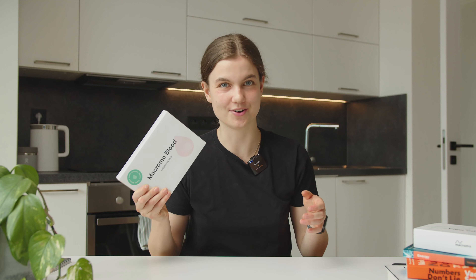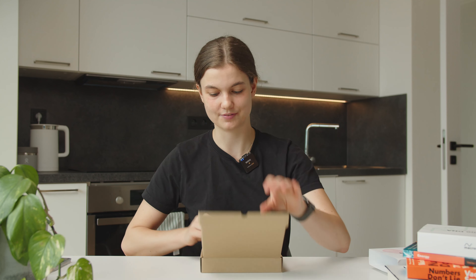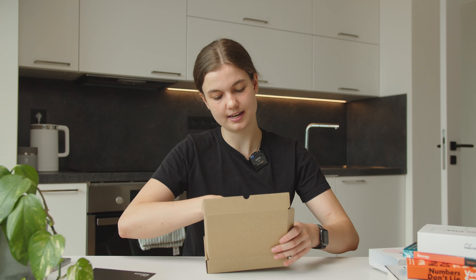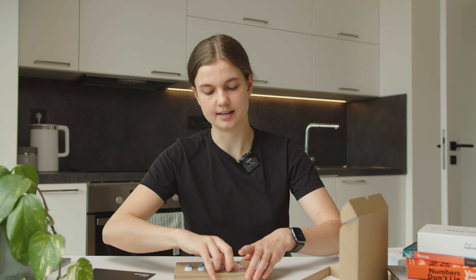So I have Macromo Blood Women's Health here with me and we are going to take the sample. Let me show you how to unbox the box — you just open it up. Inside we have a manual, and then we have this carton box with the ampules and automatic lancets.